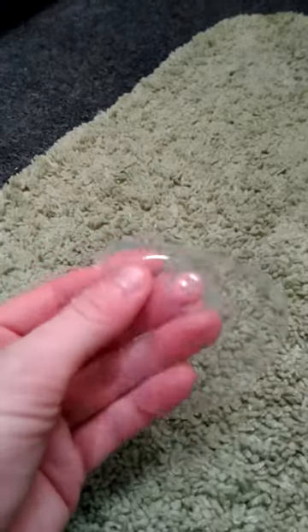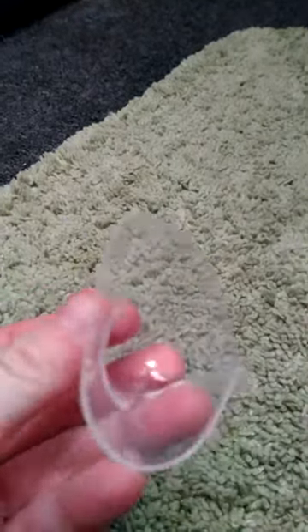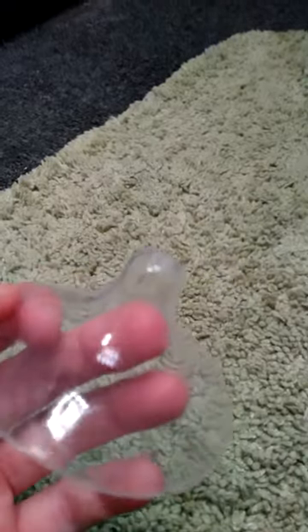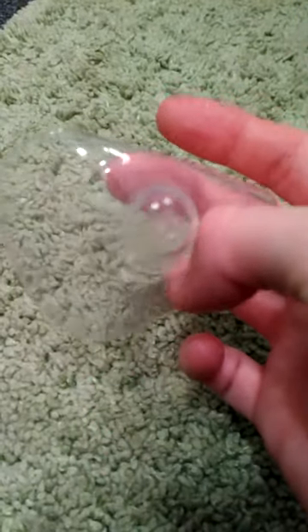These are easy to clean — just some warm water and soap. Dish soap, hand soap, whatever you want to use. You could also use baby-safe soap that has no scents, parabens, or whatever other ingredients, but yeah, other than that I think it would be a good product.